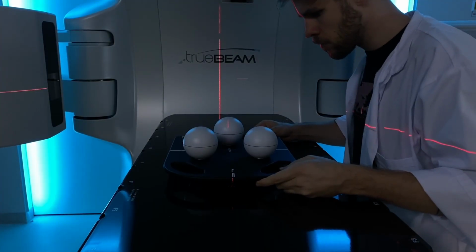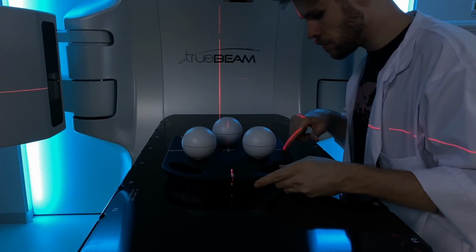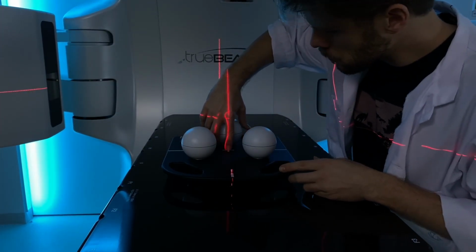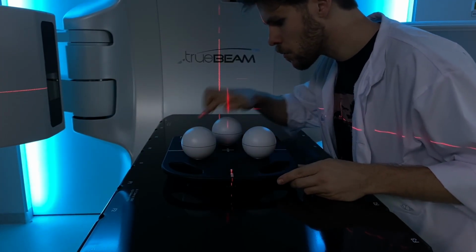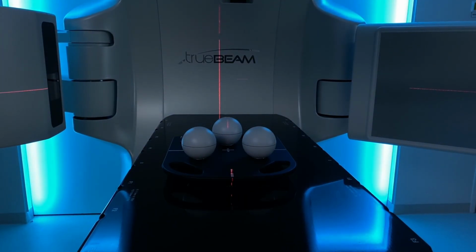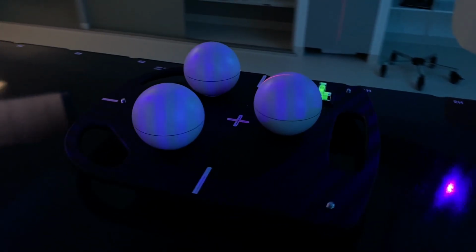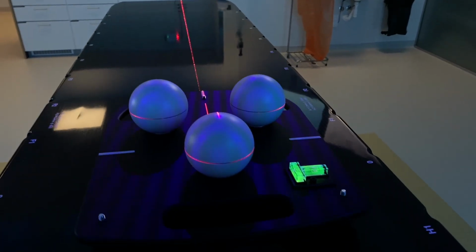As soon as we started the QA mode in C4D, we can put the spherical phantom in place. The reason for having 3 spheres is basically that we have up to 3 cameras in the room that all need to determine the correct in-room depth, where a spherical surface is beneficial over a flat surface to accurately determine the correct 3D shape. The correct orientation of the phantom is critical. Make sure to have the round side of the phantom's base pointing towards your middle Catalyst scanner, or the center sphere next to the spirit level, pointing towards your gantry.